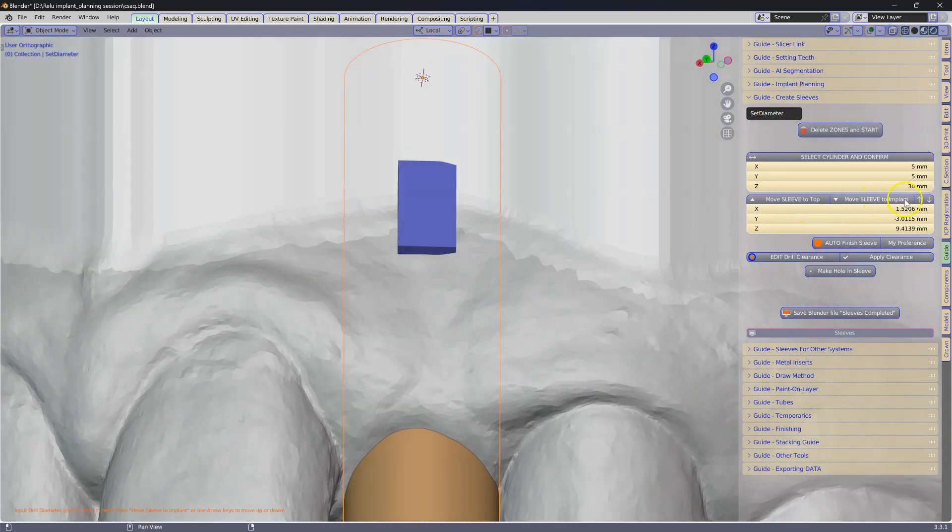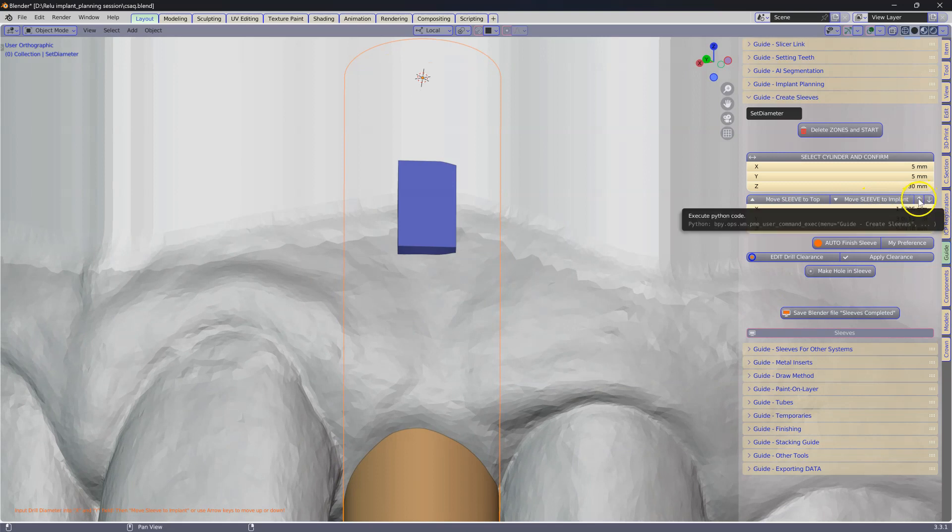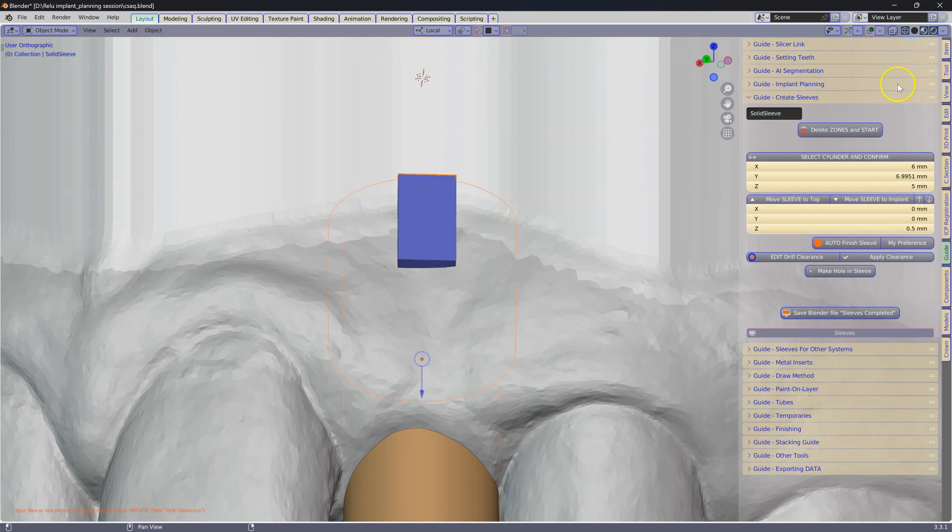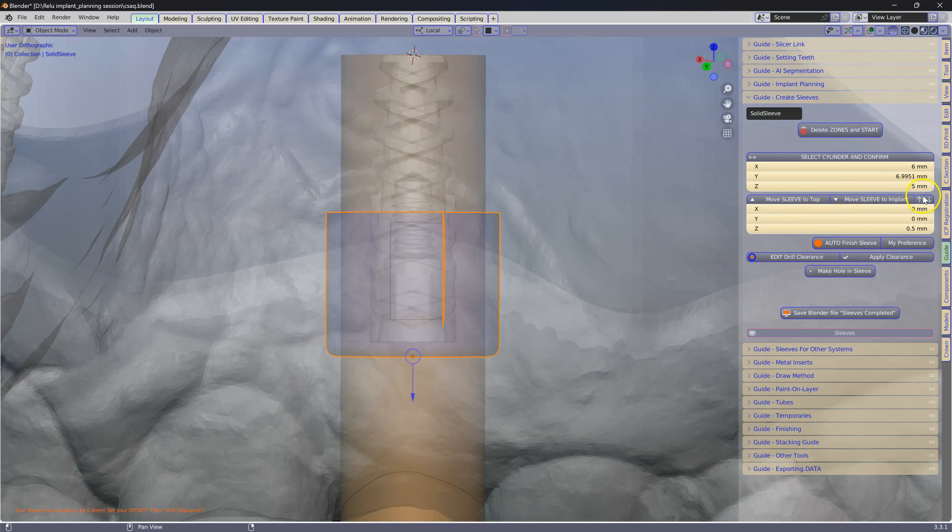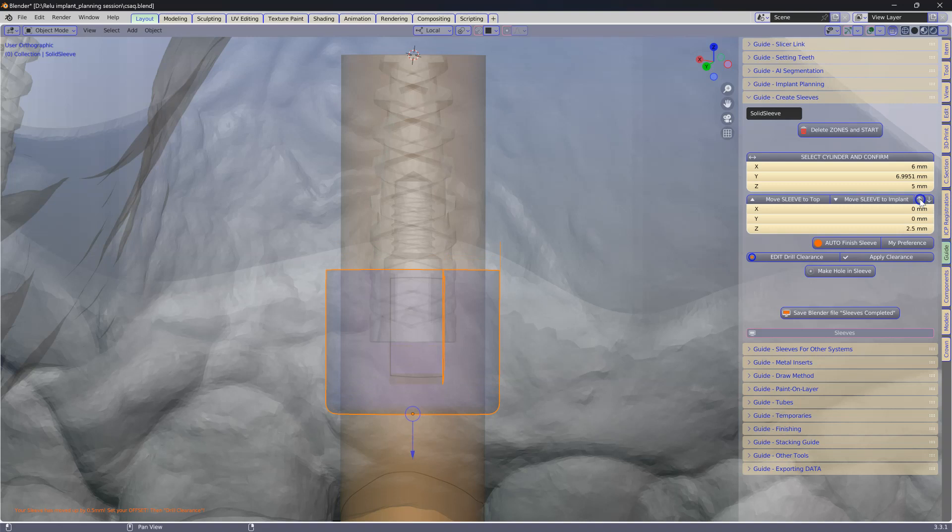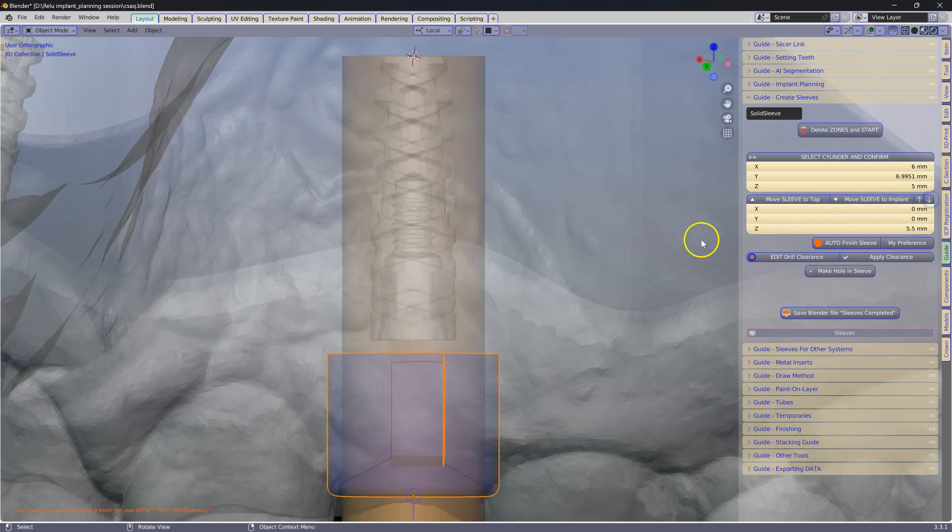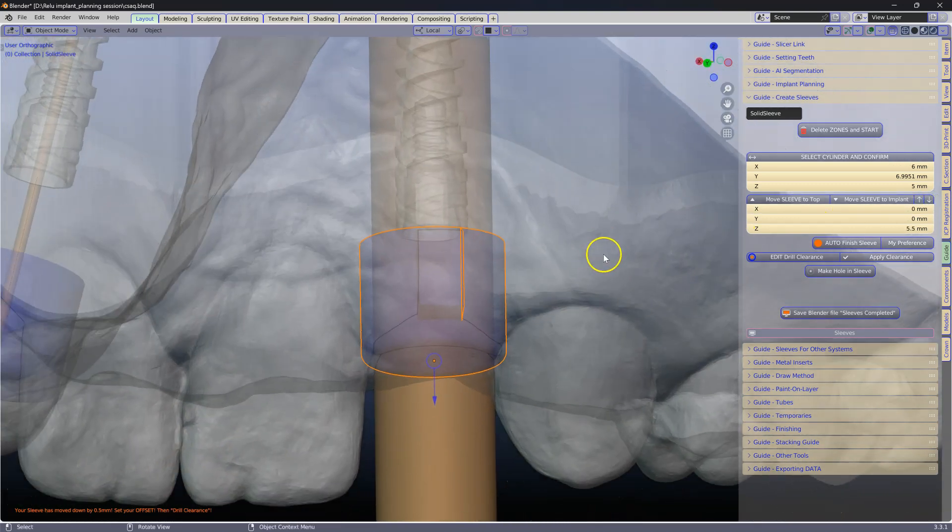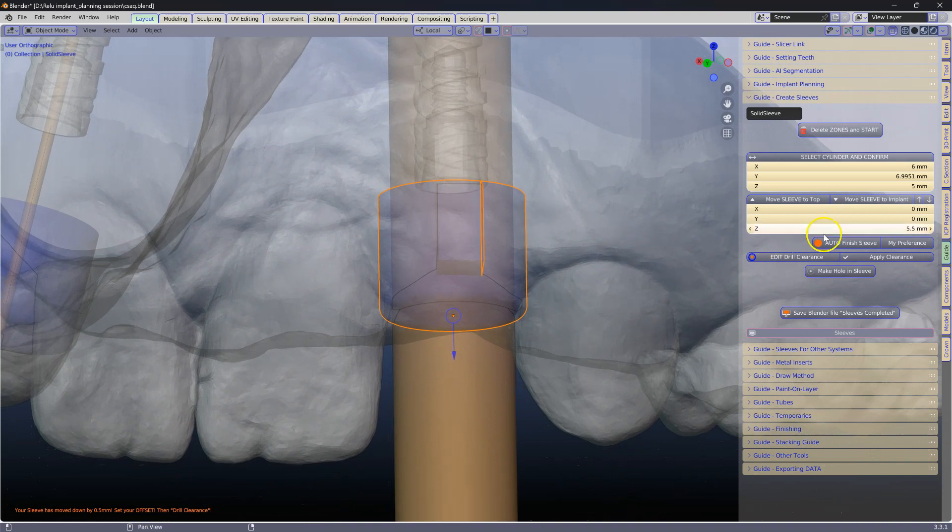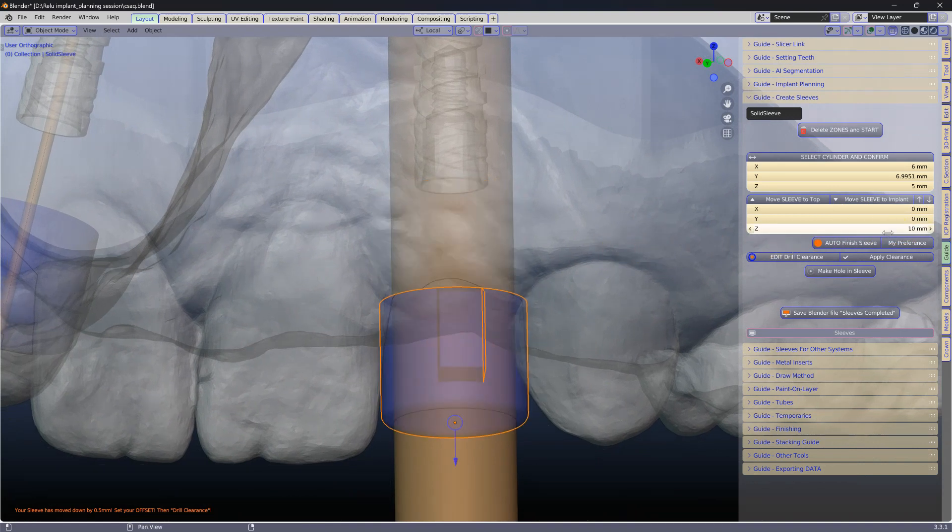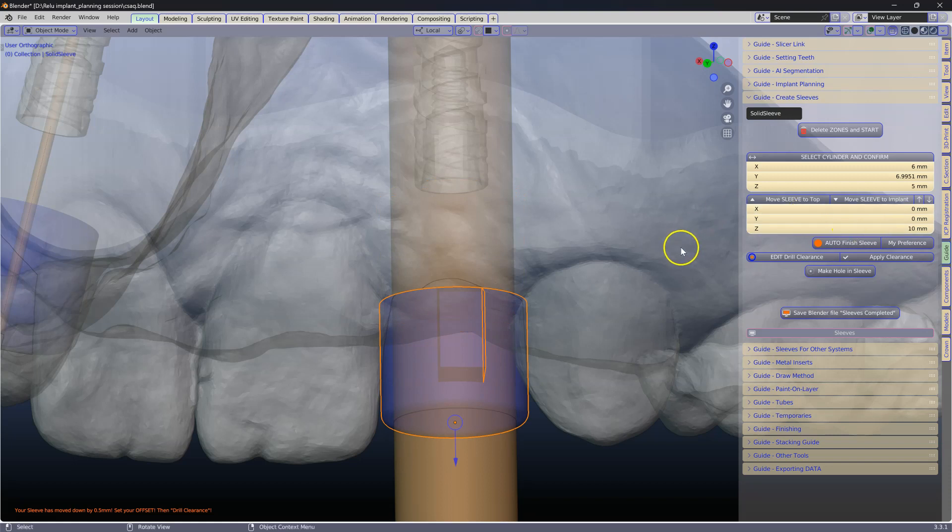Next, we can determine where the offset is. So with each click it will move in increments of 0.5 mm giving us fantastic control of the offset. If you do know the offset, key it in over here. In this instance it will be 10 mm.